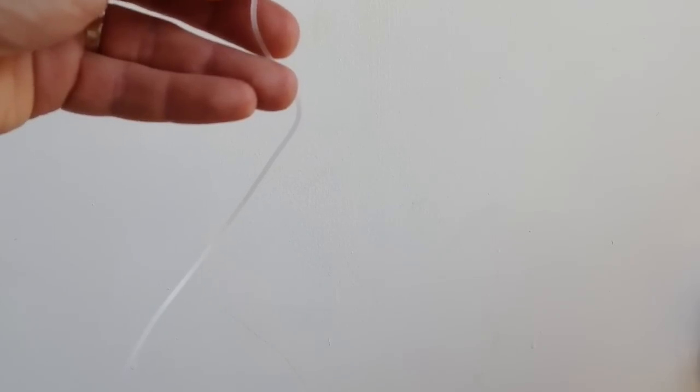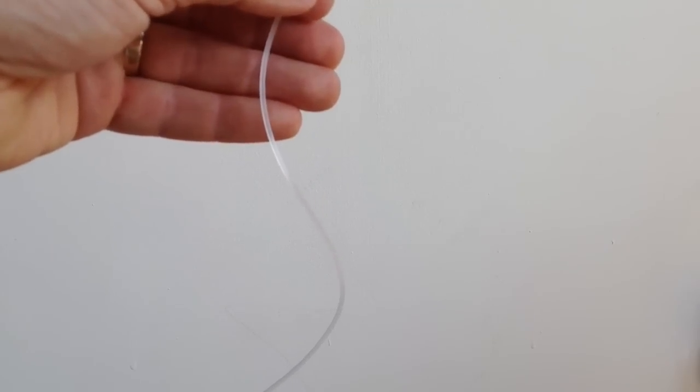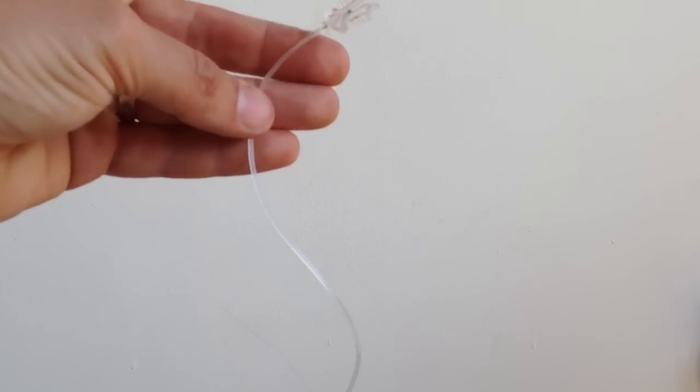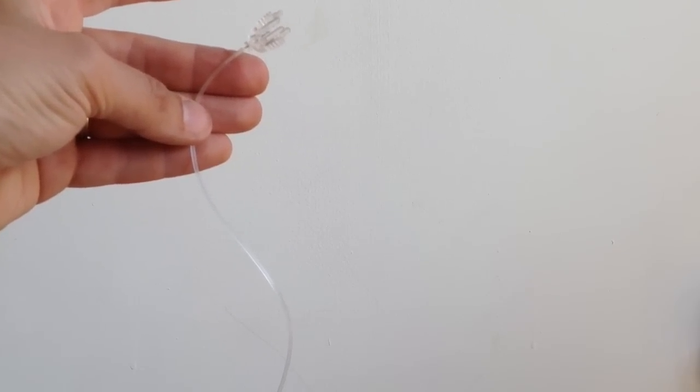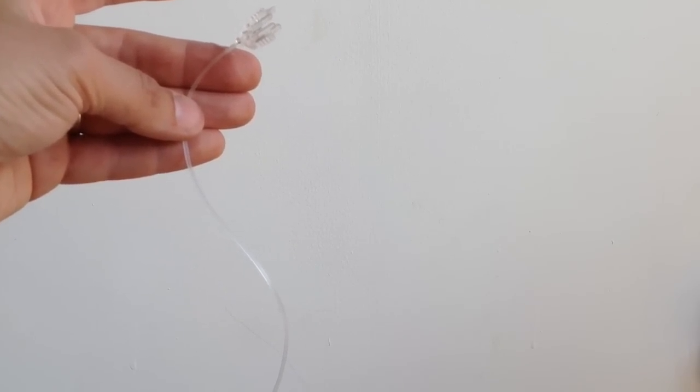And as they come through, I'm just going to prime them out. Can you see them coming through here? There, those ones. Can you see those? Just past my fingers. There you go. There they go. And they're out.